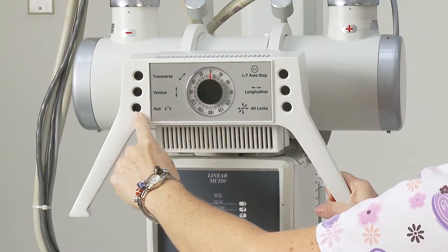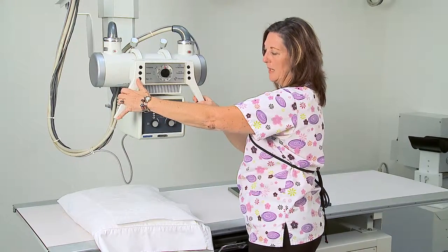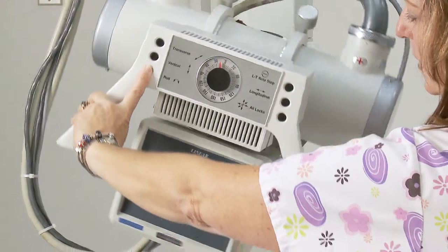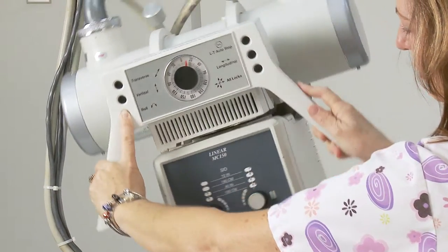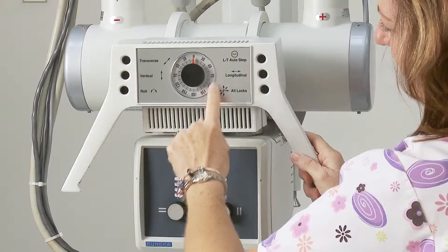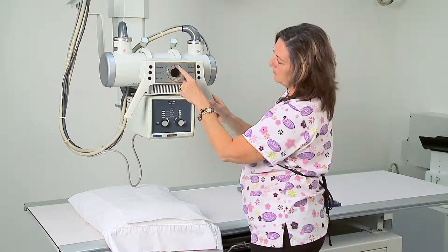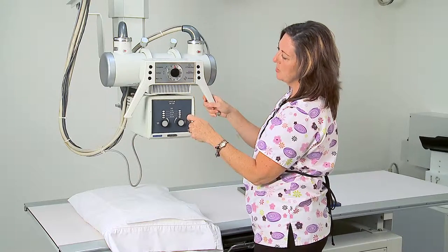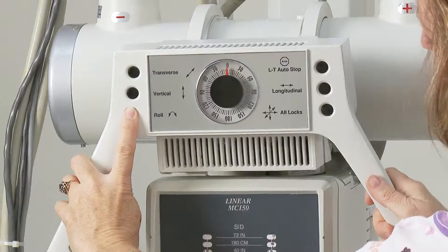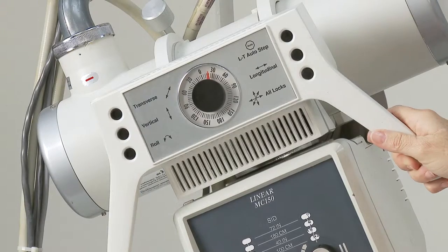The roll button will enable the tube to move towards the head — a cephalic angulation — or towards the feet — a caudal angulation. So we can roll the tube towards the feet and towards the head. This device will enable us to be accurate on the degree of rotation. So if we need a 15-degree rotation towards the feet, we would depress the roll button and move 15 degrees toward the feet of the patient.